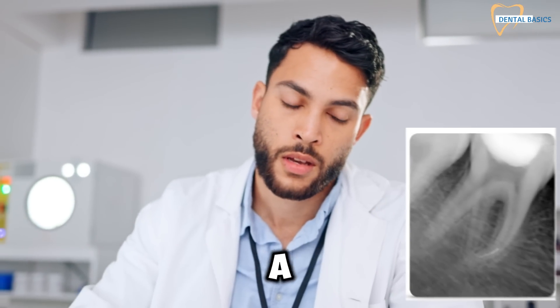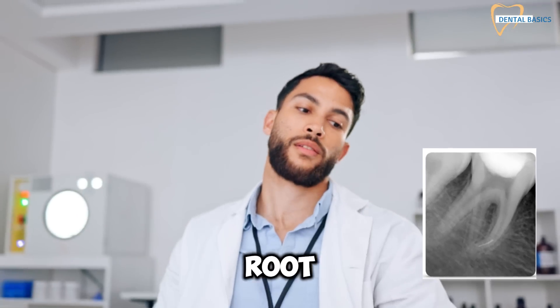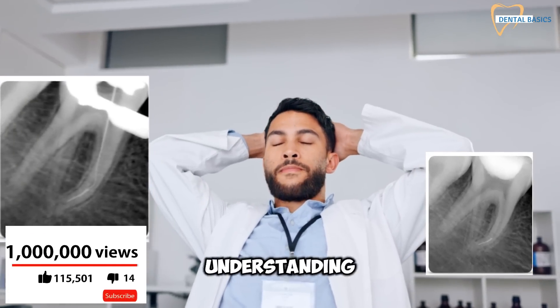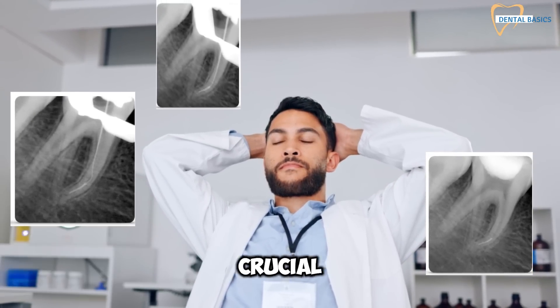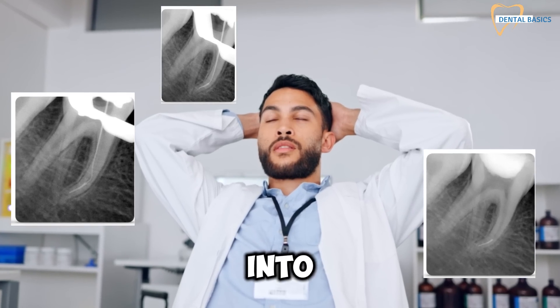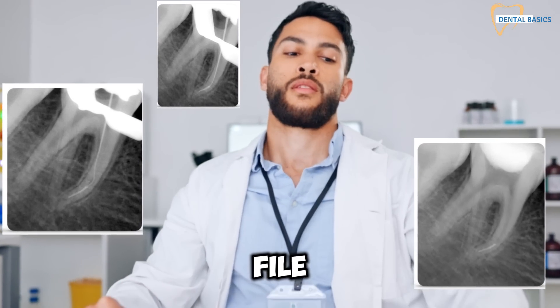Endodontic file breakage is a common and challenging complication in root canal therapy. When faced with this situation, understanding the appropriate management is crucial for treatment success. Today we'll delve into the intricacies of endodontic file bypass.